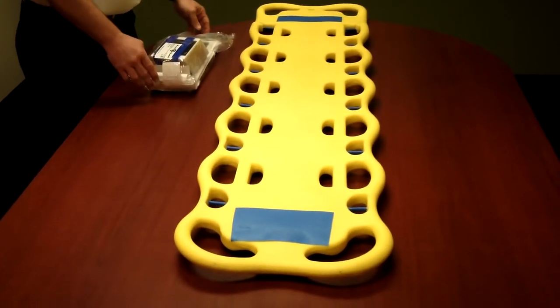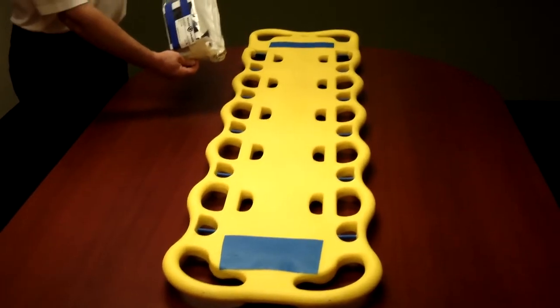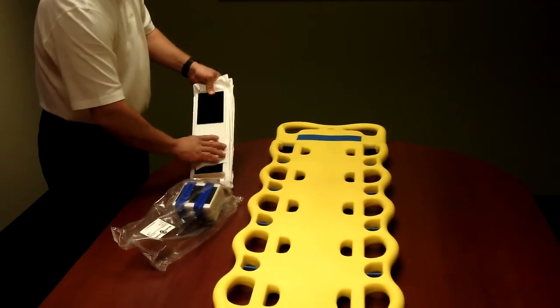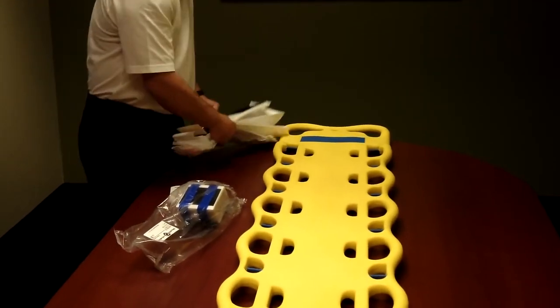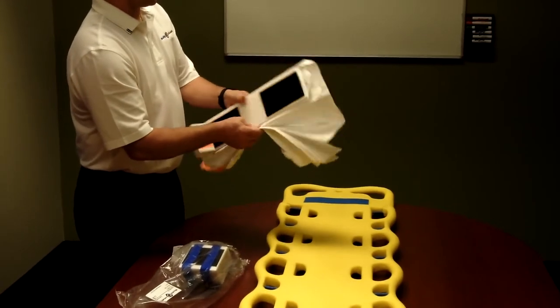This is the in-service of the Board Armor backboard cover with head immobilizer. You want to unpackage the product from the wrapper. You're presented with the head base for the head immobilizer.